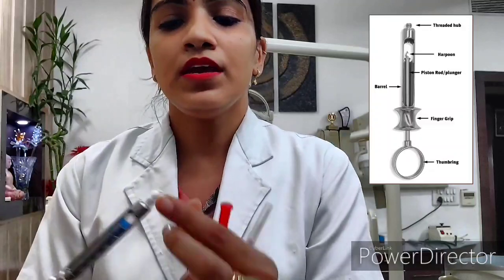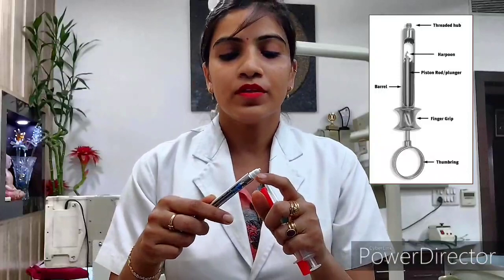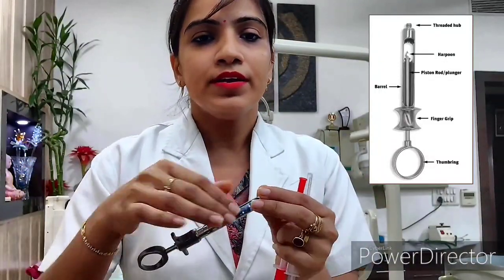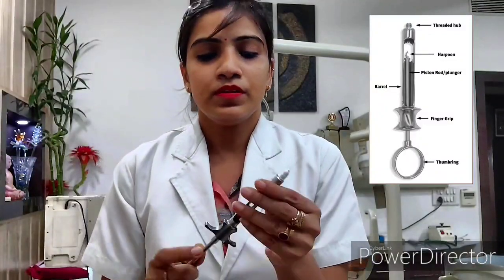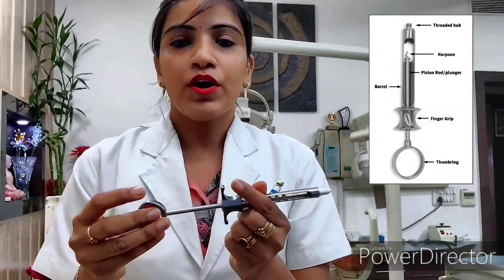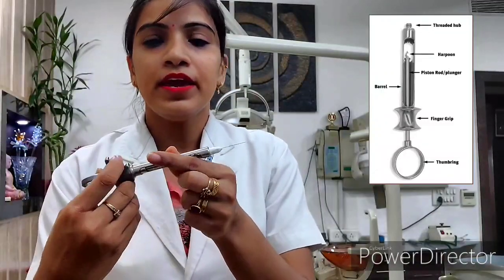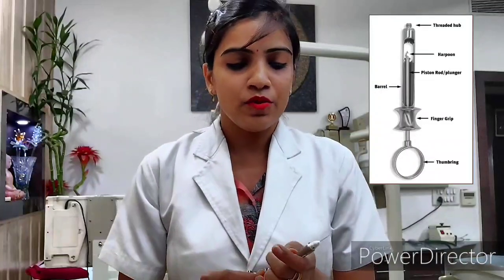Now the next one is this. This is the needle adapter, the needle hub, the shaft and the bevel. This is the body. In this we can remove it like this. And this part is called the harpoon. This is the piston. And this is your thumb ring. And this part we hold — it is the finger grip.